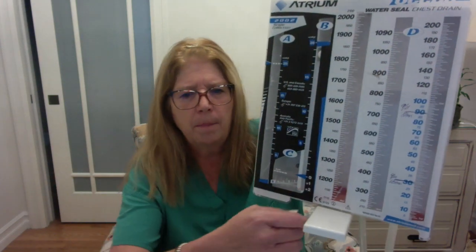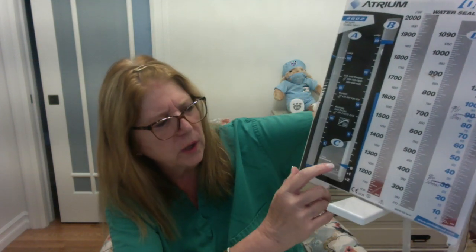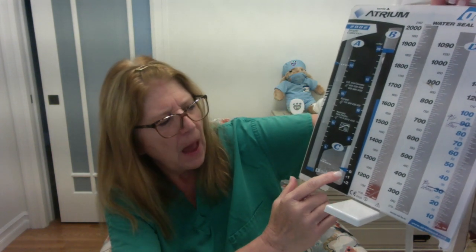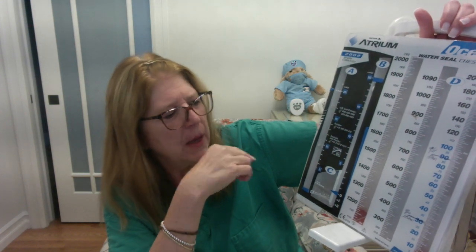So the water seal, you can see a marking right here, okay? Up at the top of this unit, there is a little port, and we can add water to the water seal up to this level. They want it at the 0, okay? And this again is where we're going to be looking for that bubbling or that tidaling, all right? So that's the water seal. That tells us again whether our system is intact or not intact.